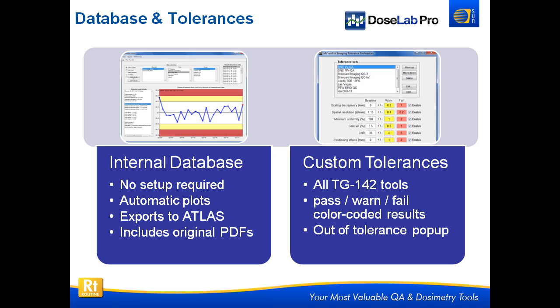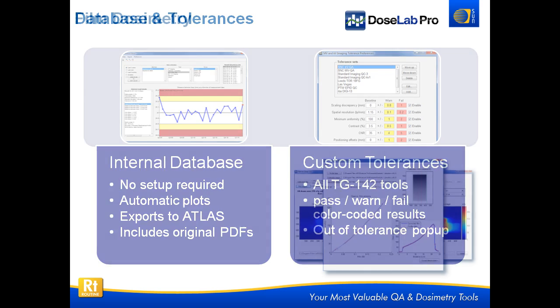The tolerances — as you can see — you can set up a lot of different sets of tolerances for each of these tests. Every parameter, you can change its baseline, its warning level, and its failure level. If anything fails when you do a test, you get a pop-up, so it's very clear that something has gone wrong that you need to look at.